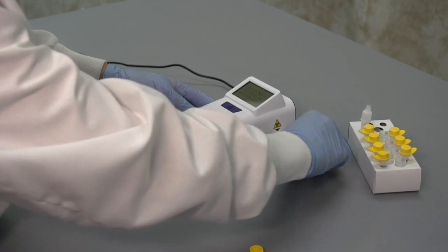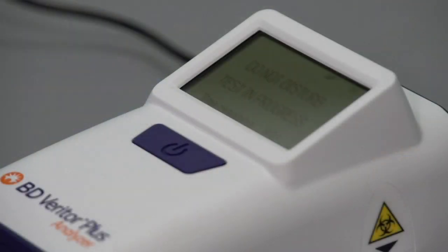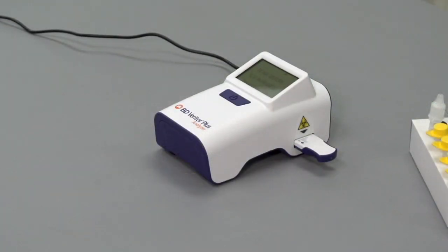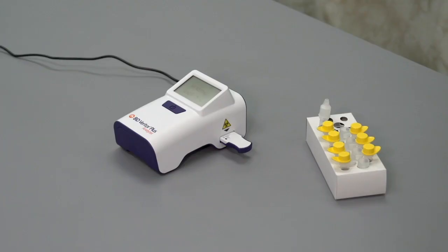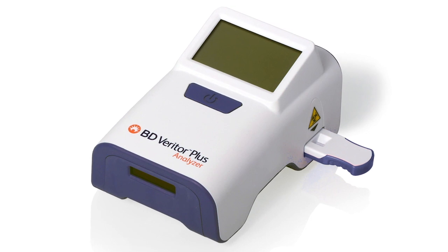A countdown timer appears on the LCD screen indicating the assay incubation period. Depending upon the type of test, the countdown will take from five to ten minutes. After completion of the countdown, test results are read, analyzed, and displayed in a few seconds.